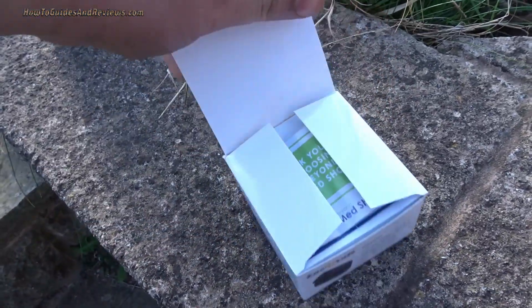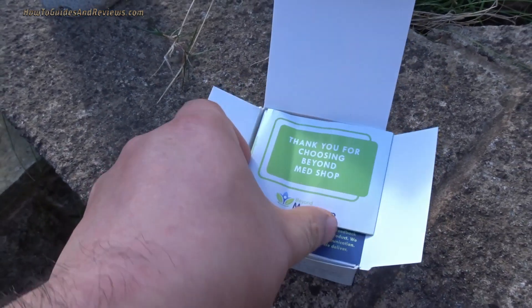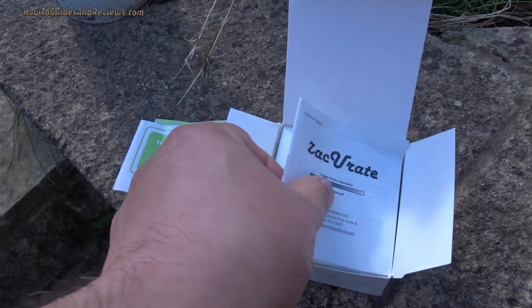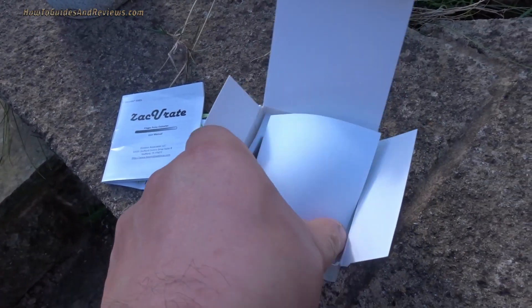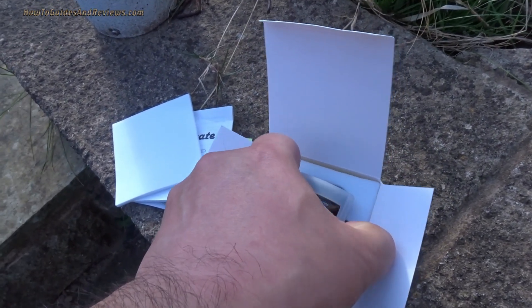It cost £36 in mid-April. Another reason I got it is because it's actually been delivered — others have to wait for shipping from China and you're not going to get those until mid-May.